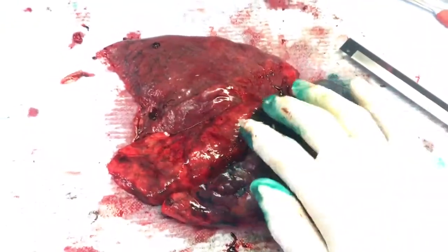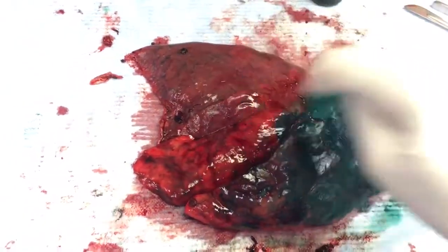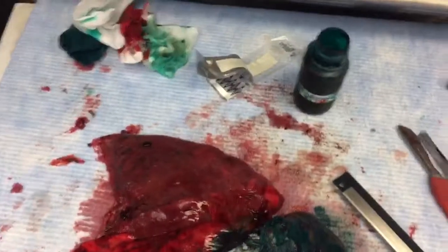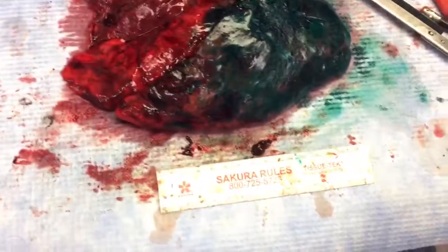This is that right lung from that other video. One, two, three. Where is it? Hiding. There it is.